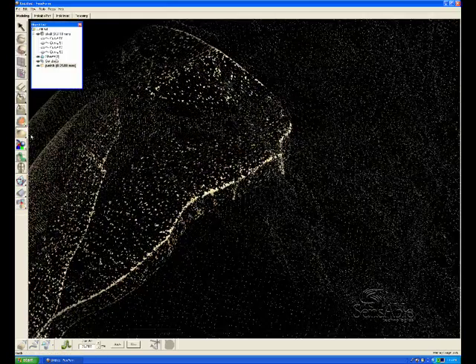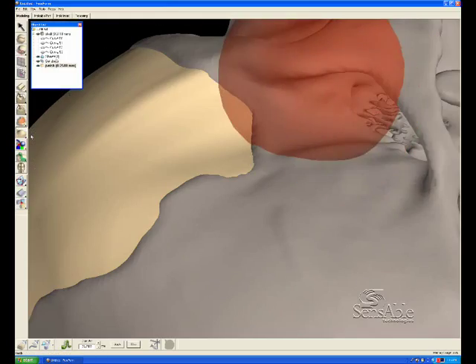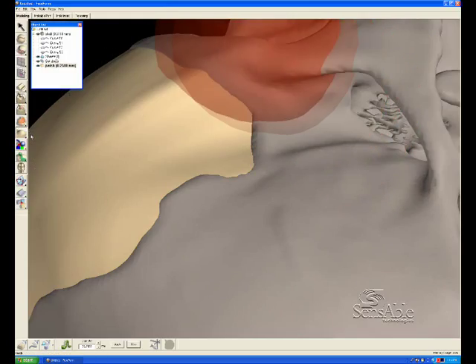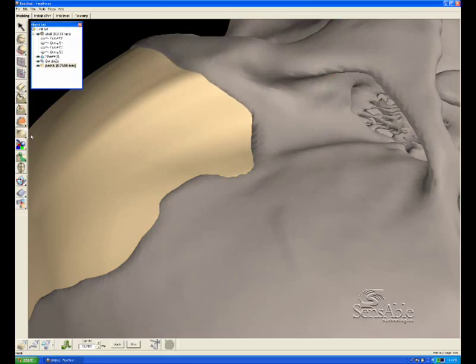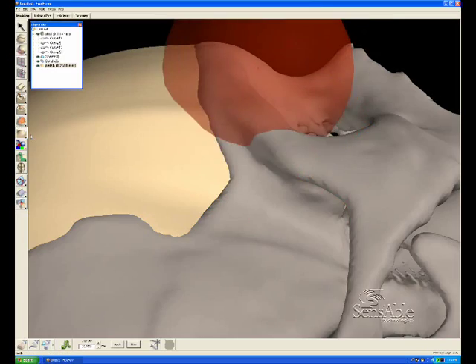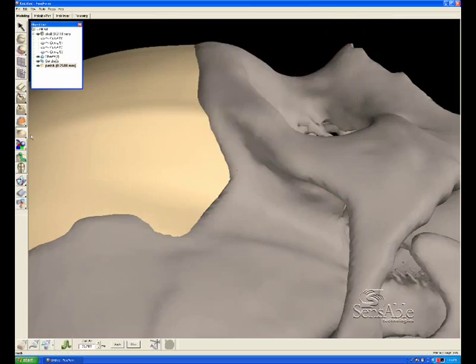Because we're going to do a boolean operation in a moment. We're going to take the geometry of the skull and use it as a cutting instrument against this plug. And you'll see the result. So any noise, any little bits that are left hanging, will simply be deleted in that function.